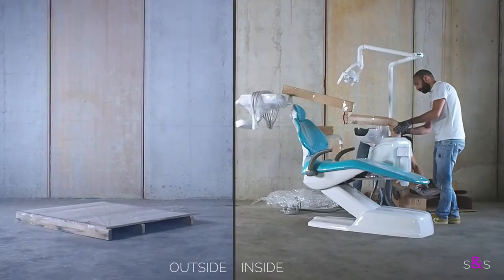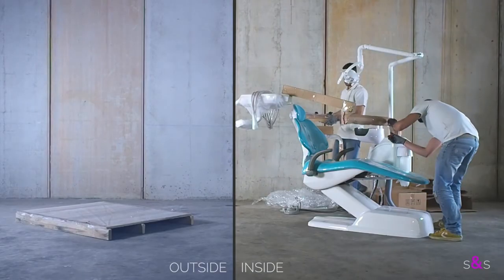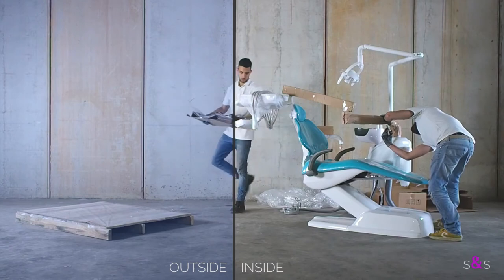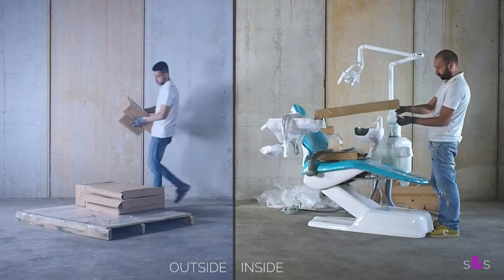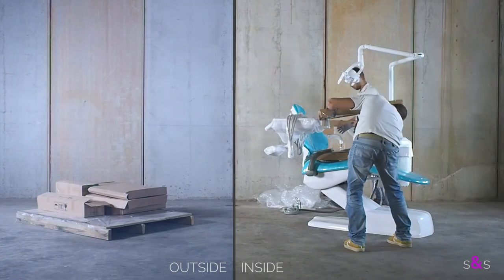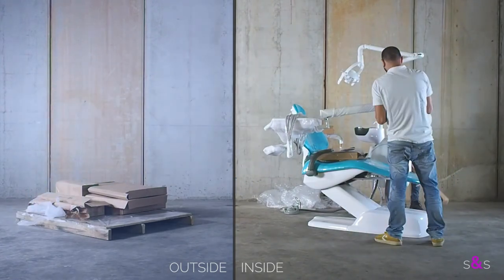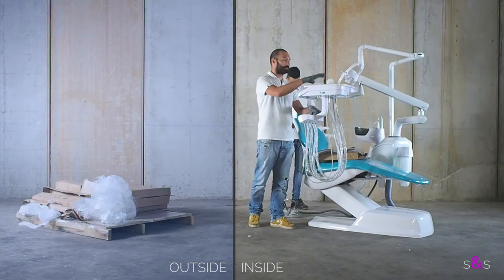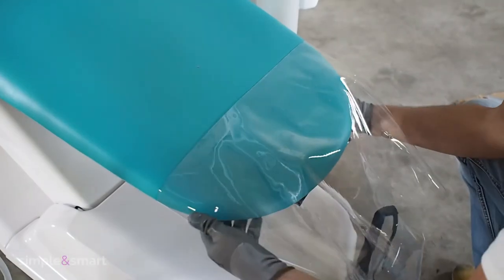Remove all chair packaging and protection safely and accurately. Please do not scratch the chair surface with scissors or cutters. Put the cartons on the pallet. Place the feet cover.